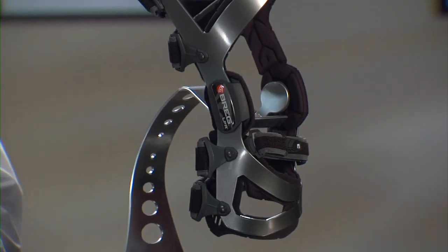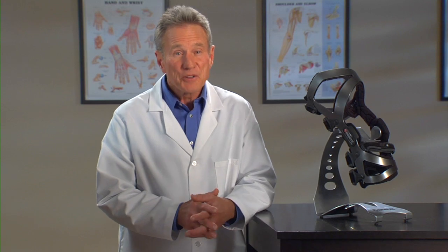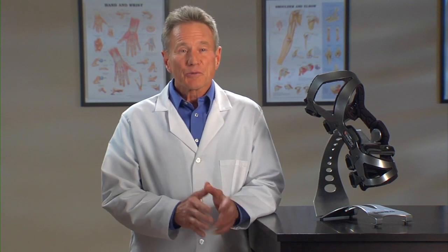You'll be wearing this brace because the LPR is designed to protect your knee by providing rigid support and stability. The LPR was also selected for you because of its comfort and fit. This is important because a brace can provide you with protection, but if it isn't comfortable you're not going to wear it, right? LPR is one of the most comfortable yet rigid braces available.